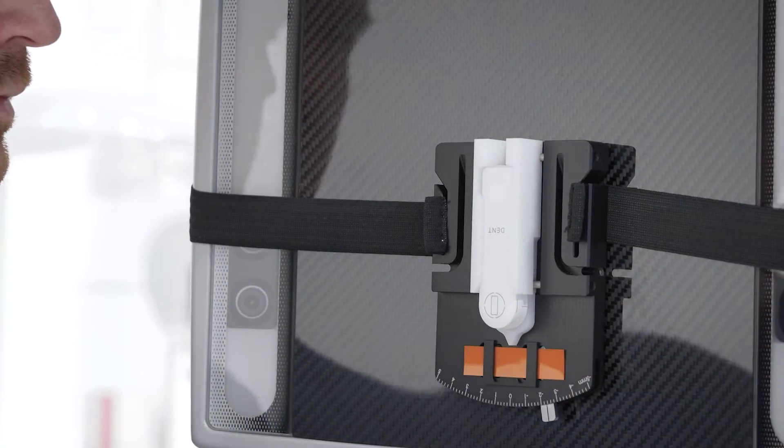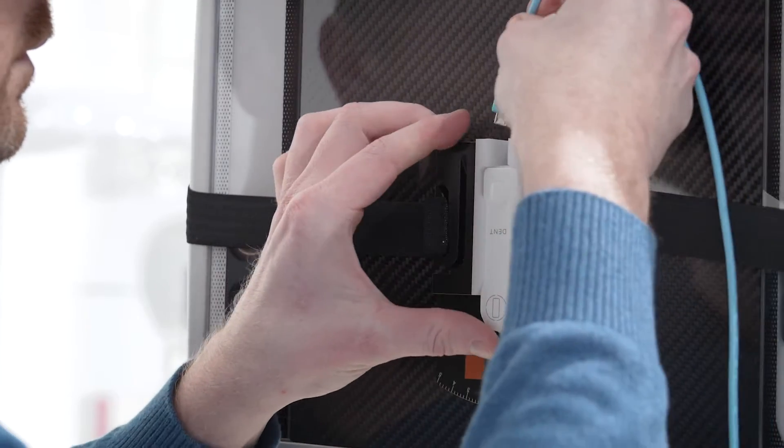Place the radiochromic film in the holder and connect the cable from the base unit to the sensor. Now, we are ready to make an exposure.